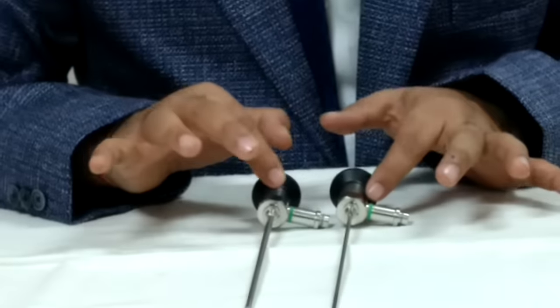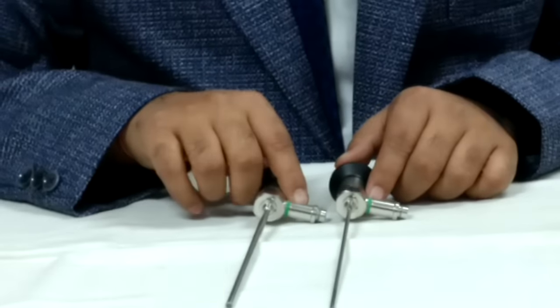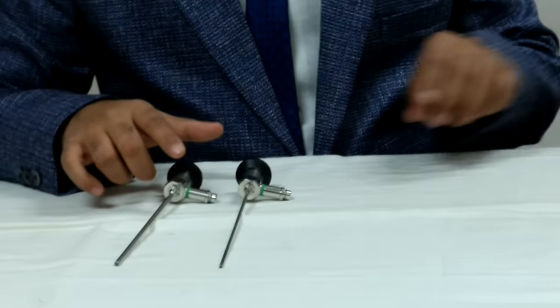But suppose this all gets wiped off, we can identify the endoscope with color coding. Similarly, I am having other endoscopes also.